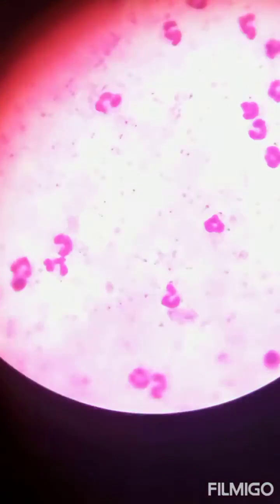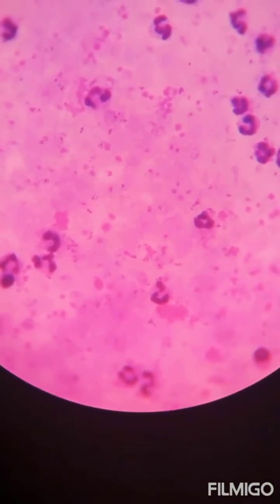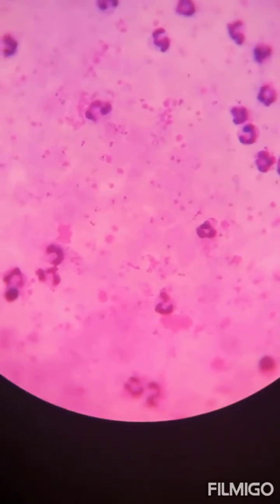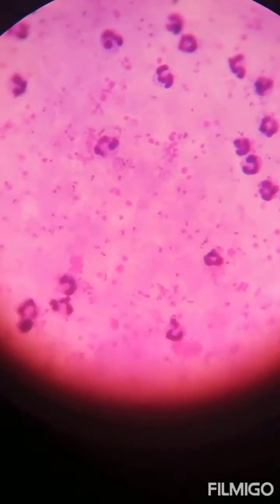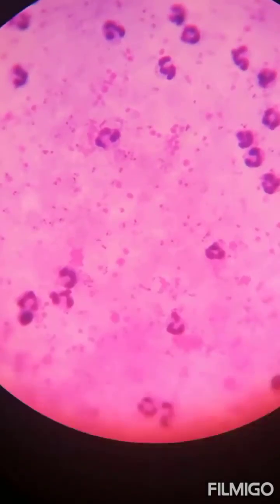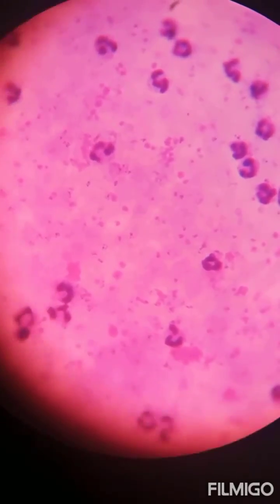Let's count and report this slide in front of us. It's a very good slide with a lot of trophozoites and a good quantity of white blood cells, to help ease the counting process for both beginners and experts. You can pause the video to enable you to count the trophozoites well. I will be waiting to see your answers in the comments below.